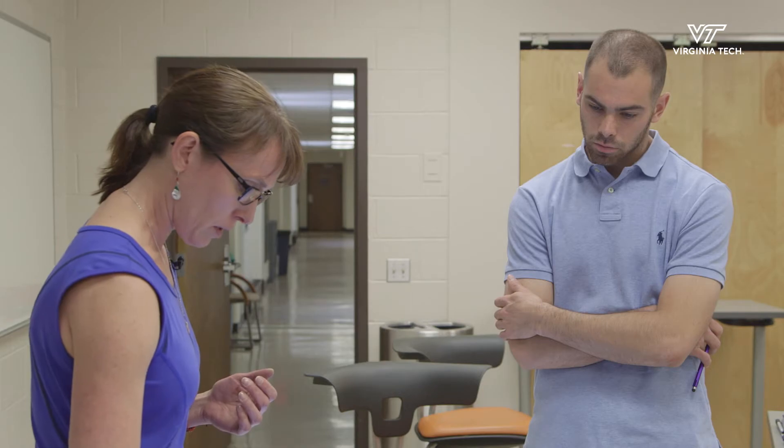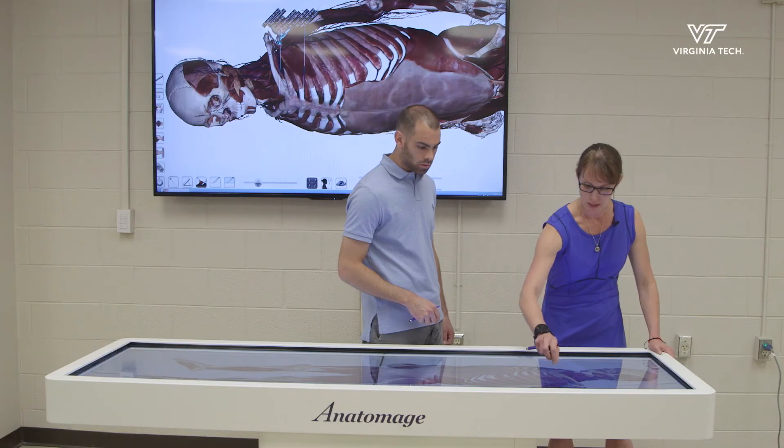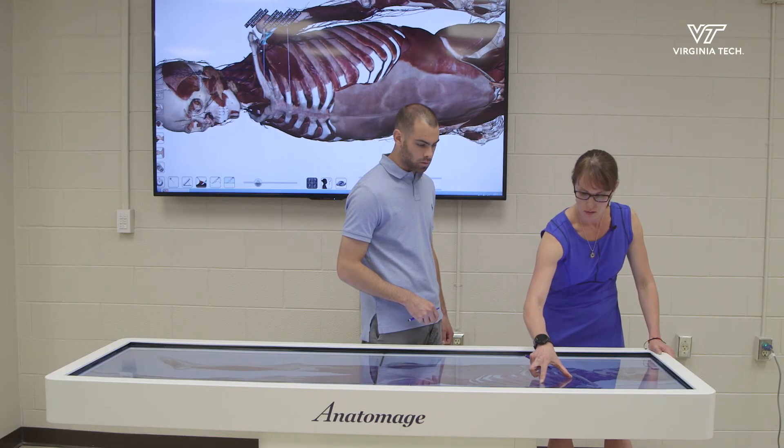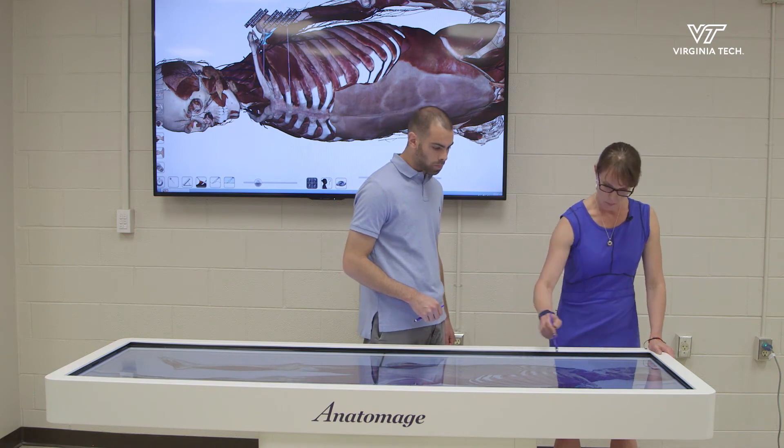My name is Will Coffey and I'm a graduate student at Virginia Tech. Diagnostic images would be really cool because you can look at real-life case scans and try to identify what was going on — just see if you can figure out the puzzle of what the person was going through.